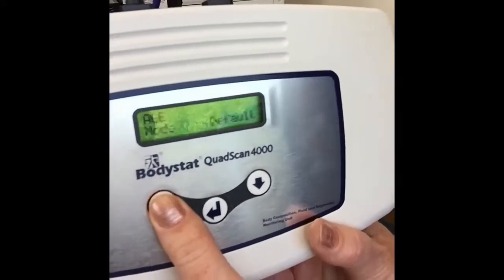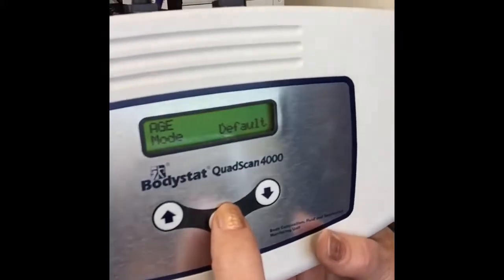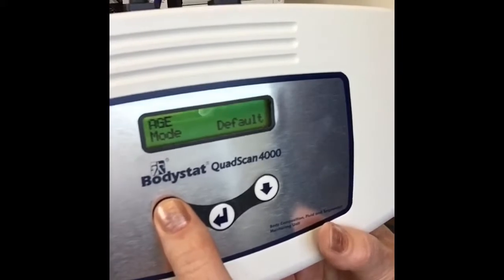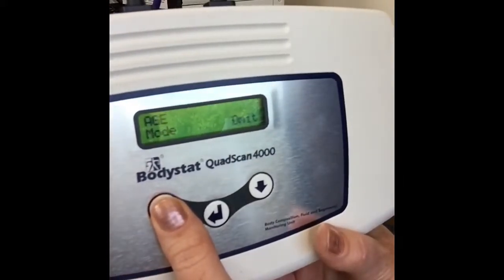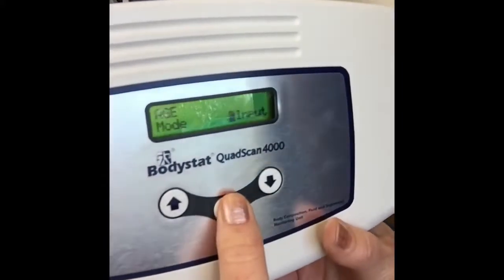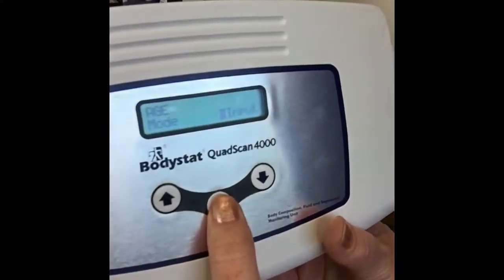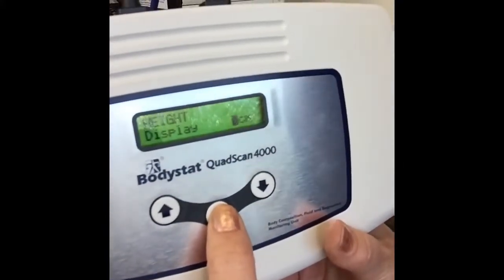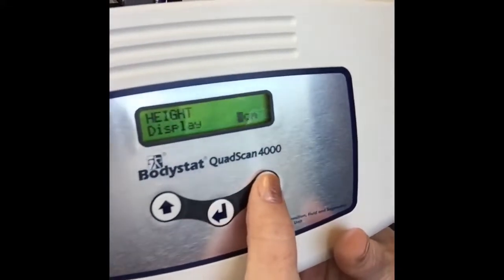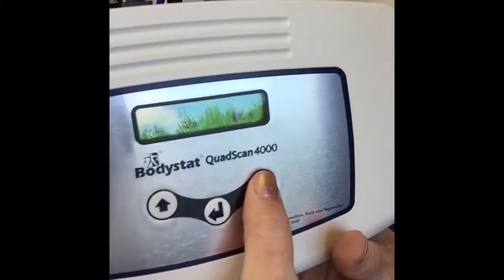However, if your population group are all 50, you can have the option of defaulting to 50, and that won't even ask you to change the age. Very rare is that situation. And then you have the option of omitting the age completely, which also is quite rare, especially if you're measuring body composition where you need these input data. So we'll keep that as input. We'll click on to the next parameter, which is height. We have the option here of changing the units to feet or inches and back to centimeters.